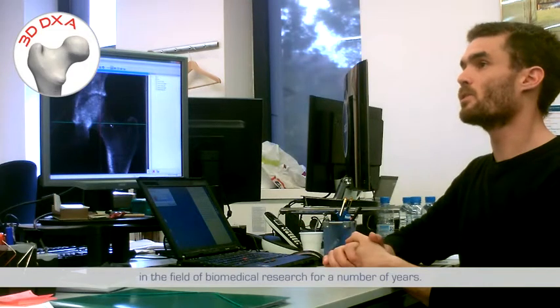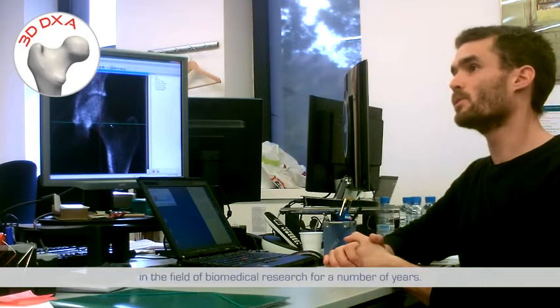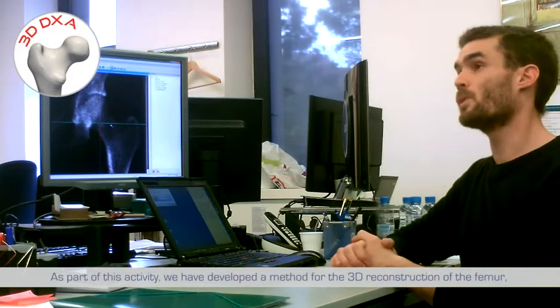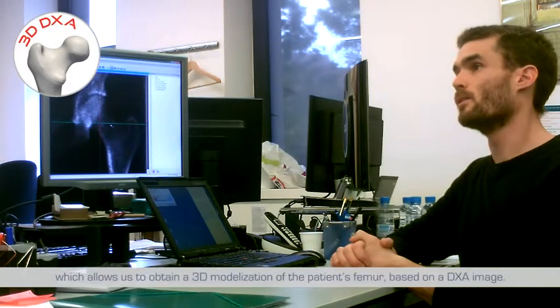The University Pompeu Fabra in Barcelona has been active in the field of biomedical research for a number of years. As part of this activity, we have developed a method for the 3D reconstruction of the femur, which allows us to obtain a 3D modelization of the patient's femur based on a DXA image.